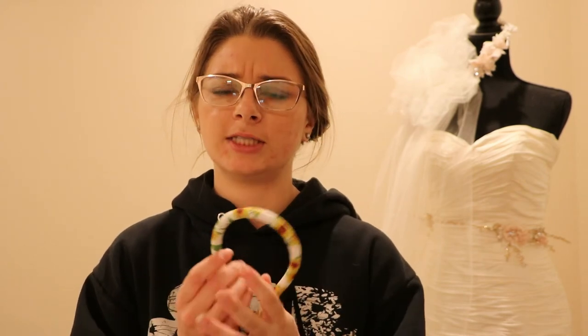But I did eventually get to try a Littman, and I really can't tell the difference as far as sound quality goes. They seem pretty comparable to me. The tubing on both — I kind of like the way the MDF feels versus the Littman; the MDF seems to be a little bit softer and more pliable. But as far as acoustics and everything, they seemed similar enough for what we were doing. If you're in a specialty clinic that deals with a lot of cardiac things, maybe you'd want a cardiology-type stethoscope, but the MDF and Littman are definitely comparable.